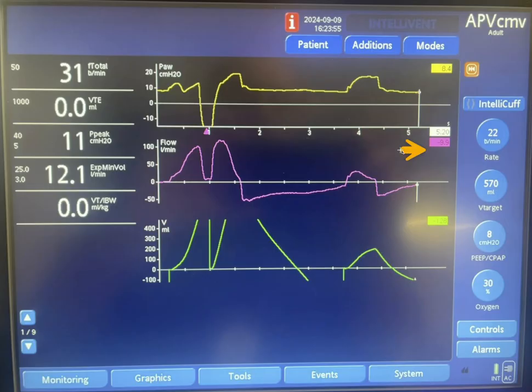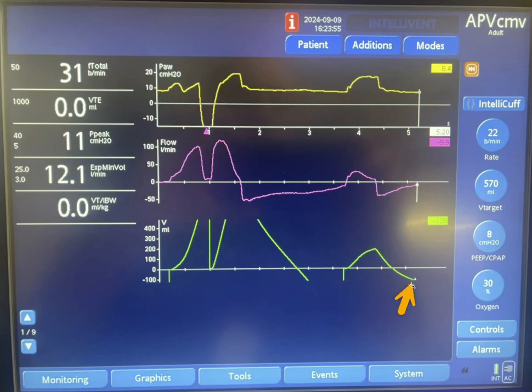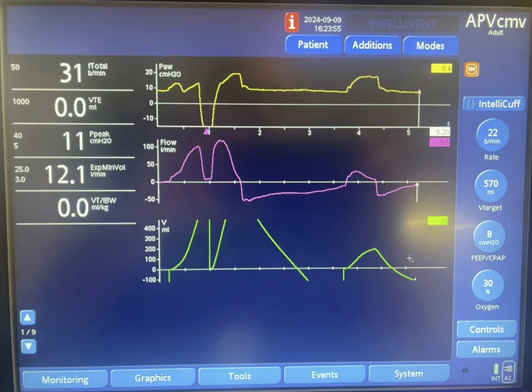When exhalation starts here, the patient exhaled everything from this breath, but then continues to exhale and got rid of the 100 mL that was not completely exhaled in the second breath. You can see it goes down to around 100 to 120 mL, confirming that this was trapped air of approximately 100 to 120 cc's. This is everything about double triggering in volume control mode of ventilation — it is complicated, but if you go breath by breath you will be able to dissect every detail. If you have any comments, please share them in the comment section — thank you very much.